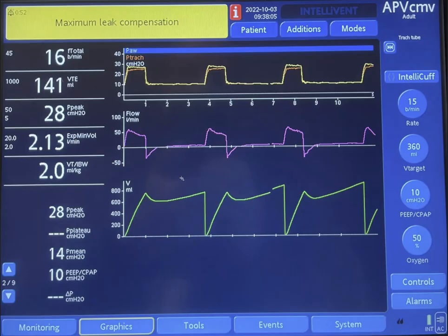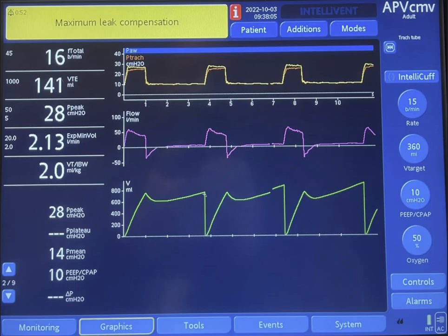So the indications that this is a leaked system: Number one, the area under the curve in inspiration is much larger than the area under the curve in expiration. Number two, you can see that the volume does not go down to zero — it recalibrates, and before the next breath the volume suddenly drops to zero. This is done by the machine; it's not exhalation.